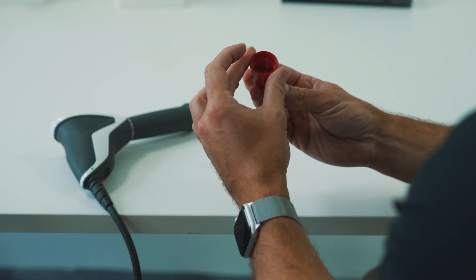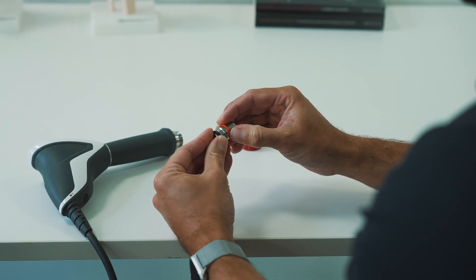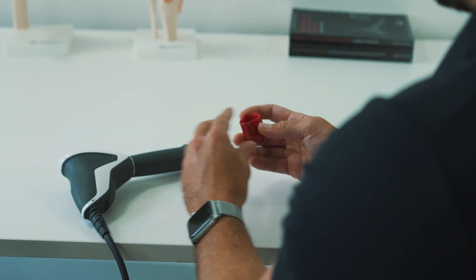Clean around the plastic casing and the transmitter itself, ensuring you remove any ultrasound gel from underneath the o-rings. Once you've done this, allow your transmitter to dry before reassembling and reconnecting to the device.